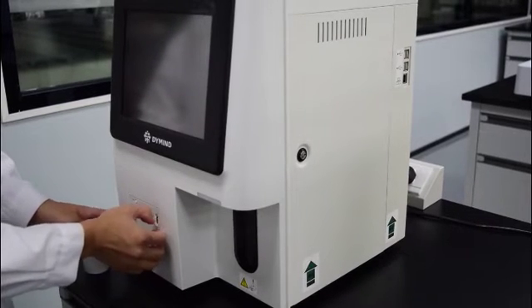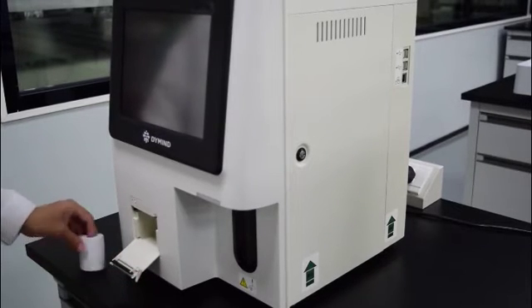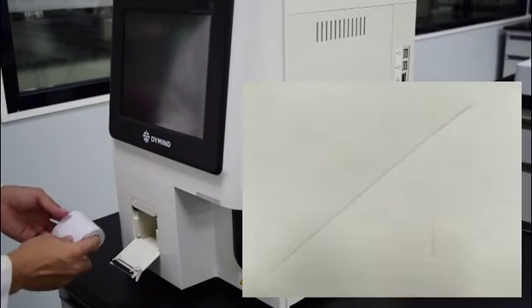Install the thermal printer paper, and do not mistake the printing surface. The marked side is the print side when you scratch with your fingernail.